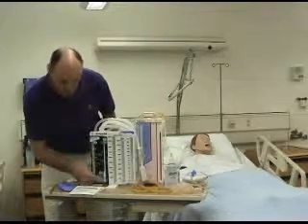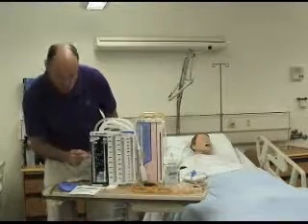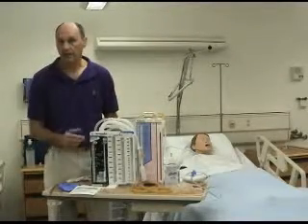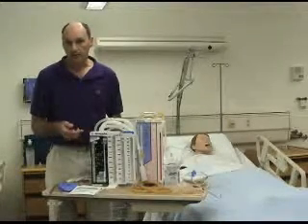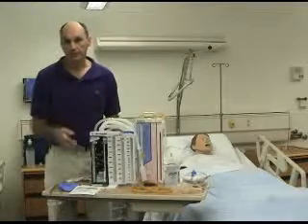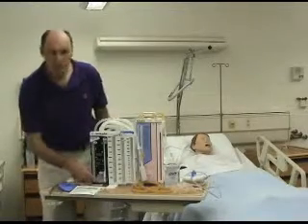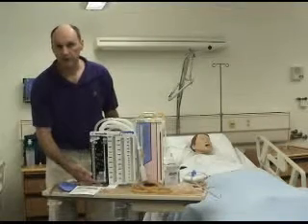The first one, with the suction control chamber, I only put a little bit of water in it below the -20 centimeter level, and in the case scenario I tell them it's supposed to be at a -20, and during the student experience they're supposed to assess the chest drainage system and notice that the water level is below what was ordered. I also will incorporate an air leak, so the students are supposed to be able to identify an air leak.